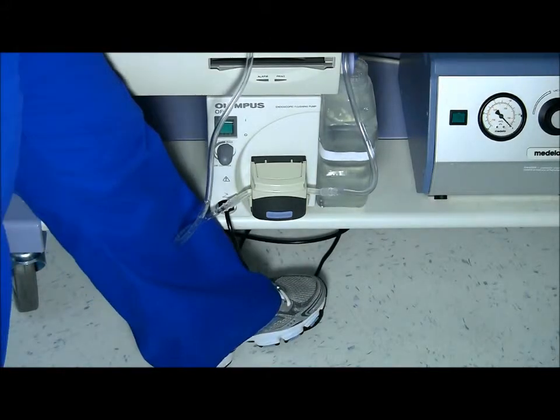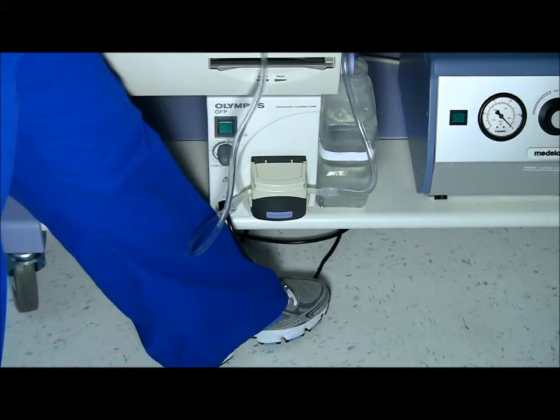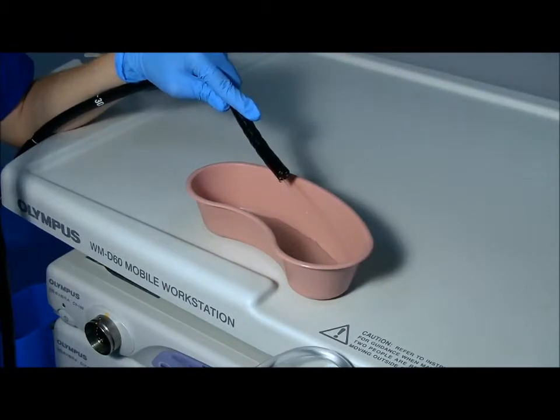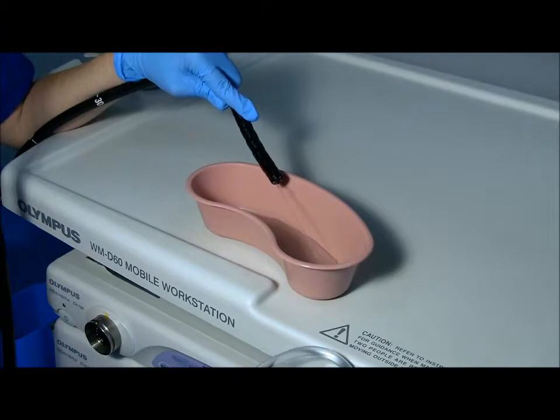After the tube set is attached, simply place your foot on the foot pedal of the pump, engaging the pump system. Place the distal tip in a fluid receptacle and watch for a precise stream after a few seconds. Once you see the stream of water, the system is fully primed and ready for the procedure.